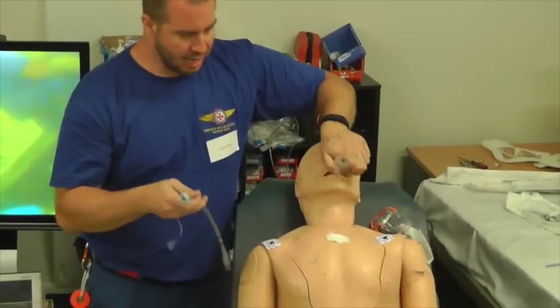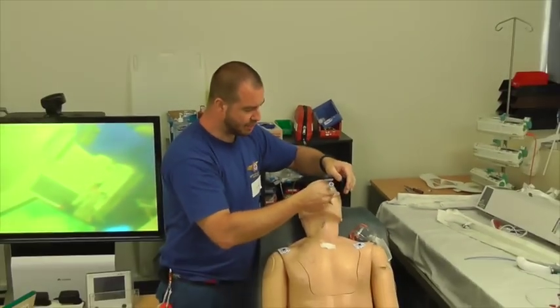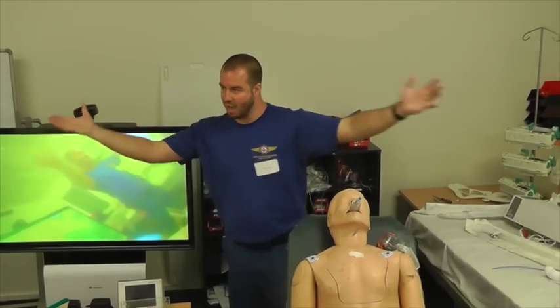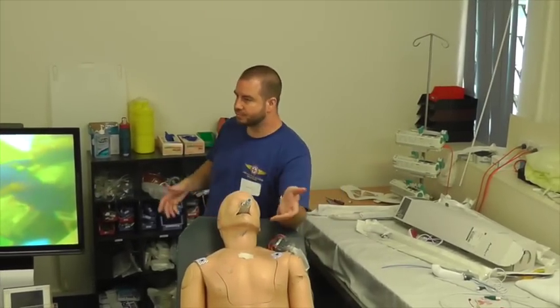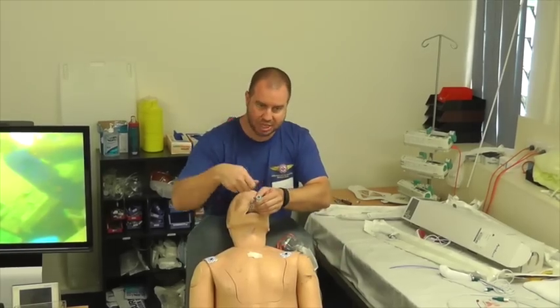Okay? Now once you've got that in, and your scope preloaded, and it goes through and it's in the vocal cords, and it's in the trachea and you're ventilating, what do we do now? Leave it in. Leave that in. We don't exchange over the top.